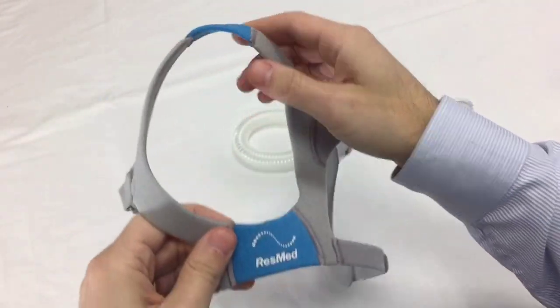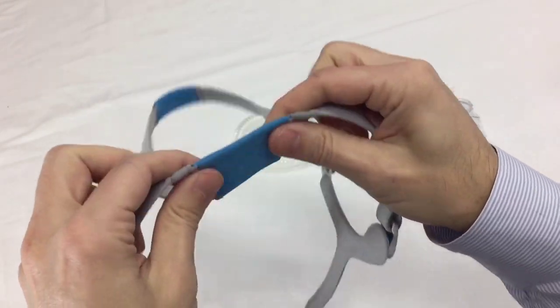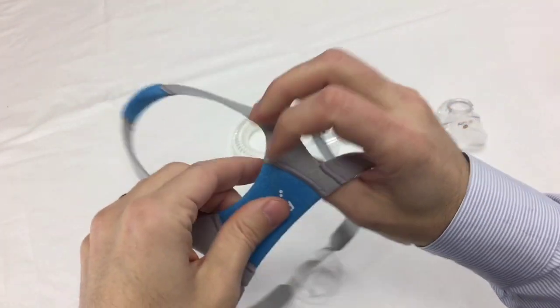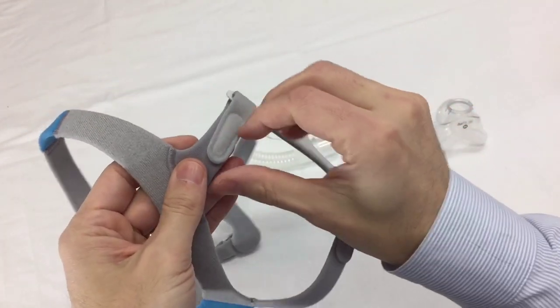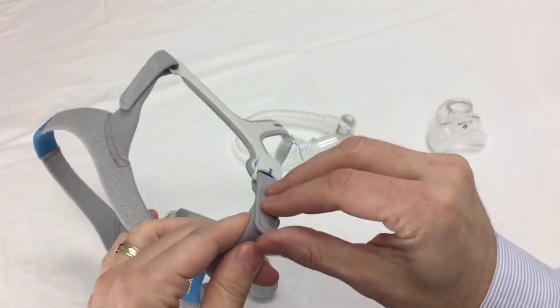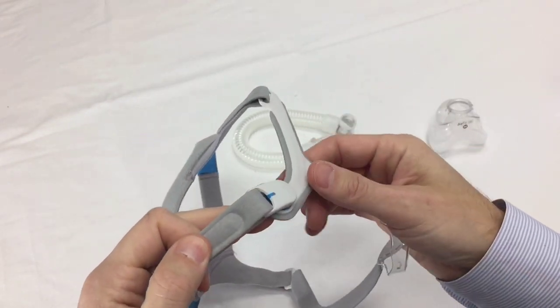No buckles or anything, it's all smooth. And we have the Velcro here, which is nice and tough. There's four points of Velcro so you can make small adjustments.